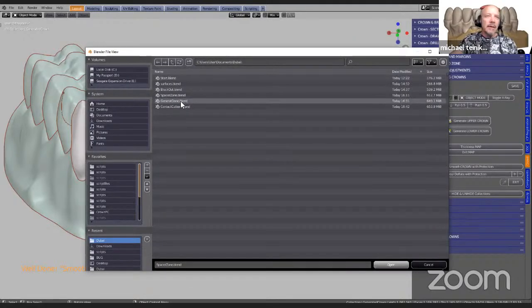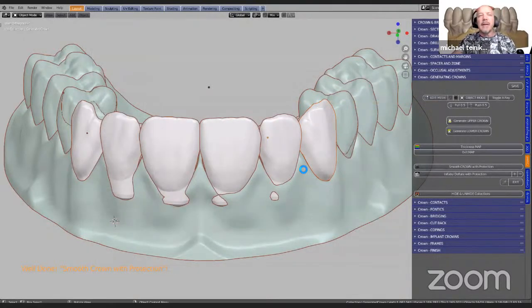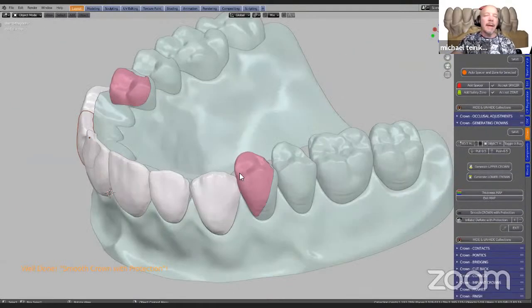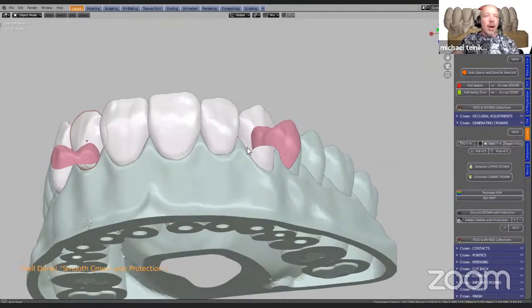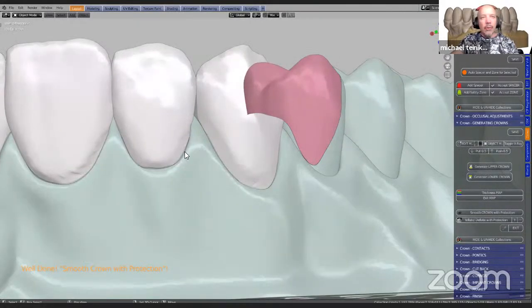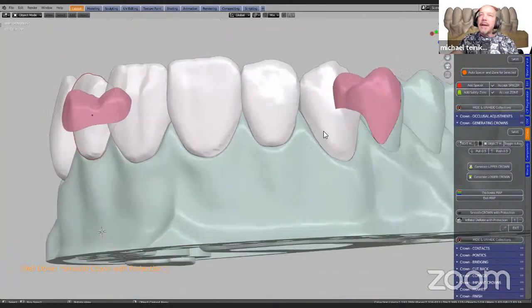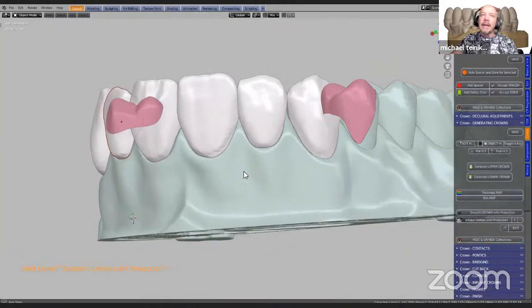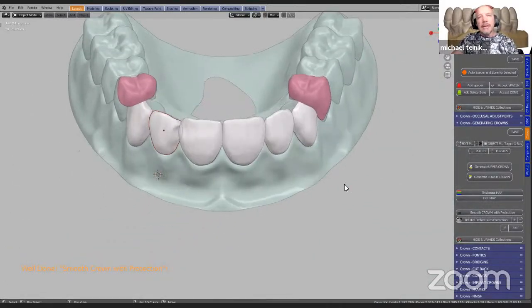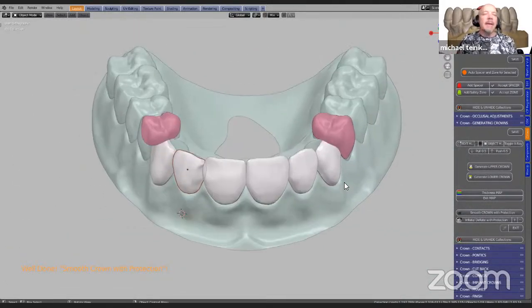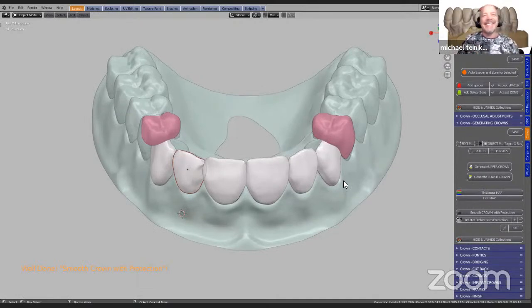This is generated and this is what it then looks like. All of the veneers are here. You will notice there's a little bit of rough area around the margins — that's from where it has been joined. The next step is contacts.